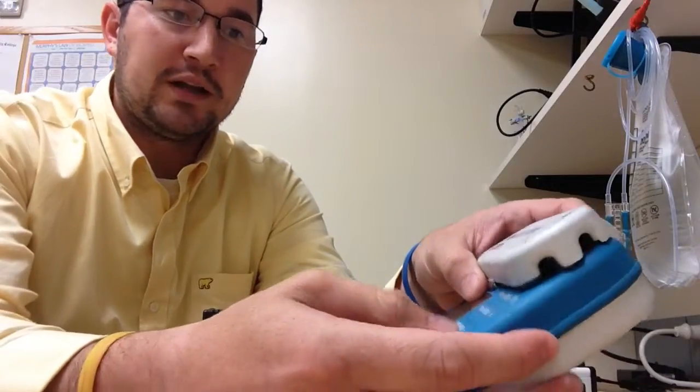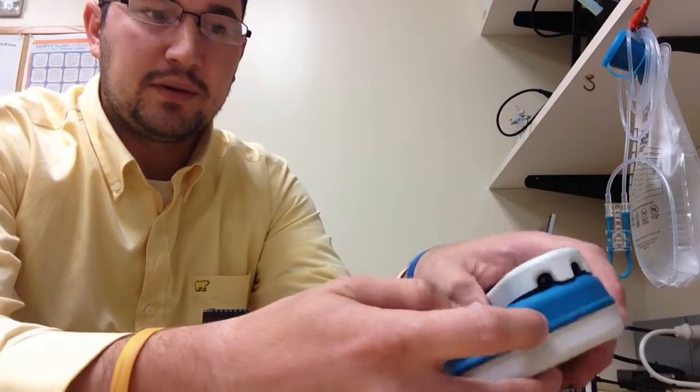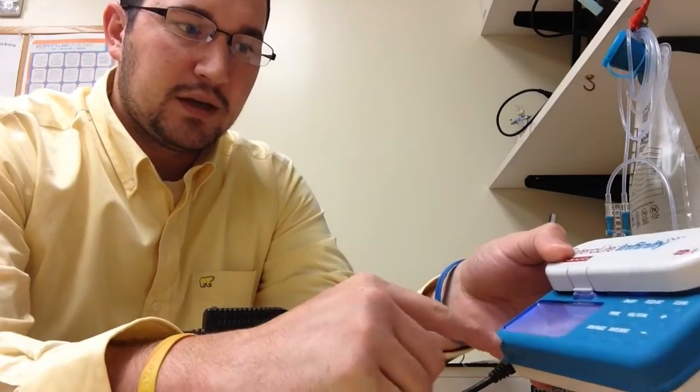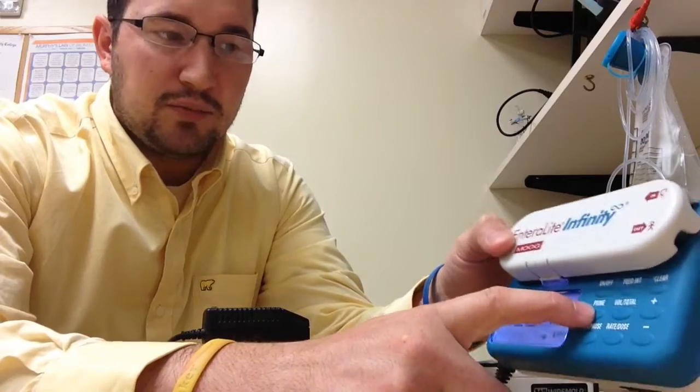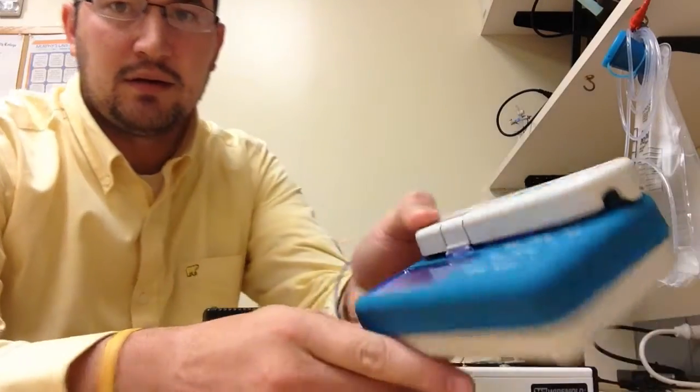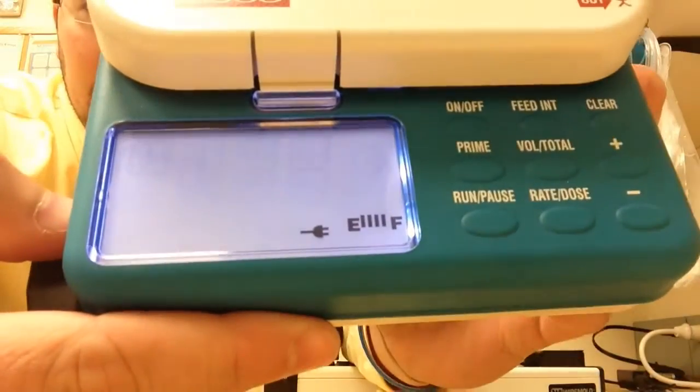So when you first turn on the pump, if you hold down the plus button and the on-off button, you'll be able to see it says beep high. When you get these new, it'll say beep low. To change it, you want to push the prime button. And here's the beep high.